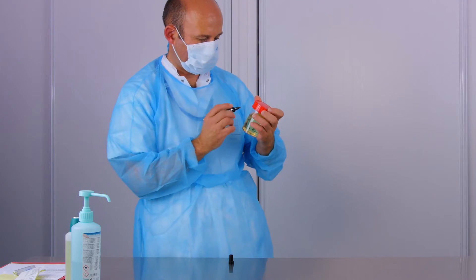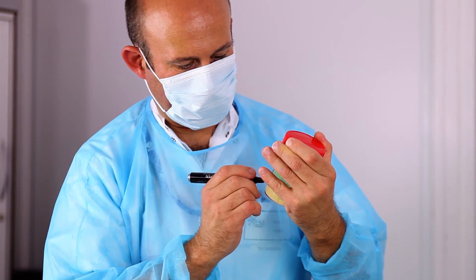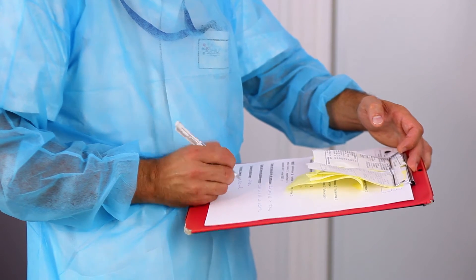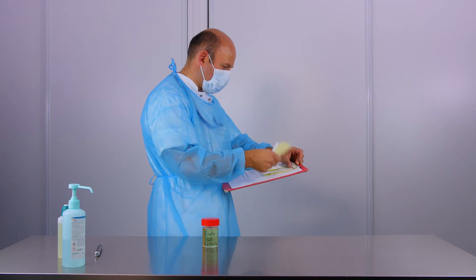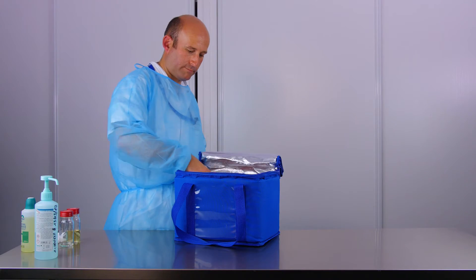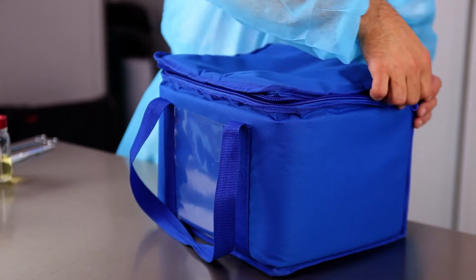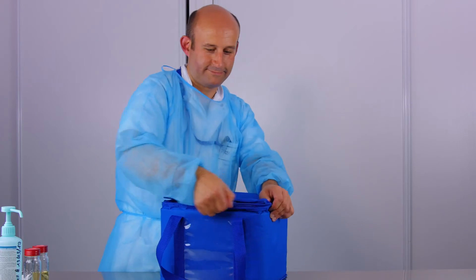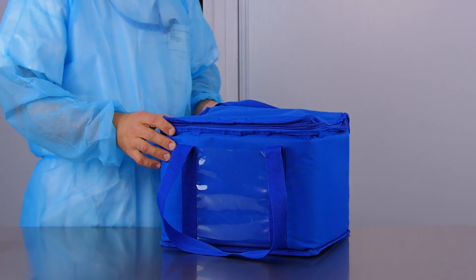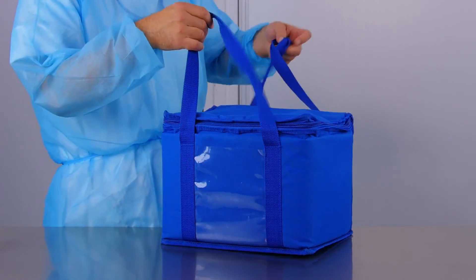Identify the sampling bottles with a marker pen and fill in the sampling sheet. Samples must be carried in a clean, light-free container and must be analysed as soon as possible. Make sure the sample is kept at 5 degrees Celsius if it is analysed more than 2 hours later.